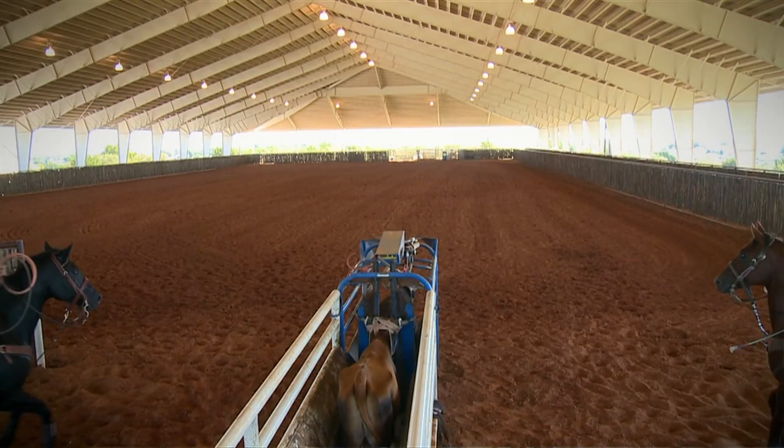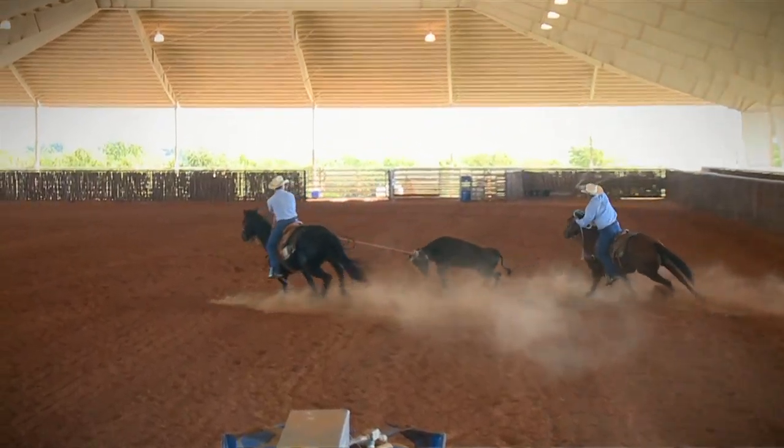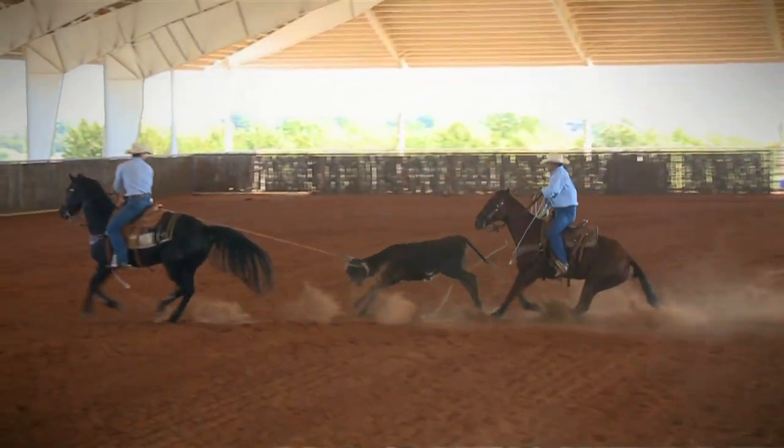In order to provide support for the equine leg, we must protect the sesamoidal region. We need to be able to wrap or cradle the sesamoidal region and lift and support it during its motion in order to provide beneficial support. If we don't do that, we run a risk of hyperextension or overextension, which is the result of extremes. Today's performance measures ask us to go to extremes in order to be competitive with our horses, and in those events of extreme, we run the risk of soft tissue damage.